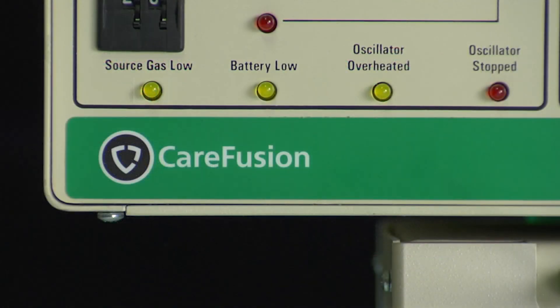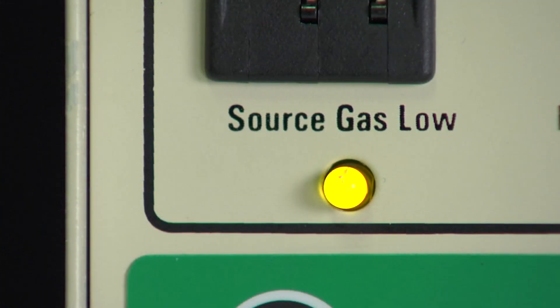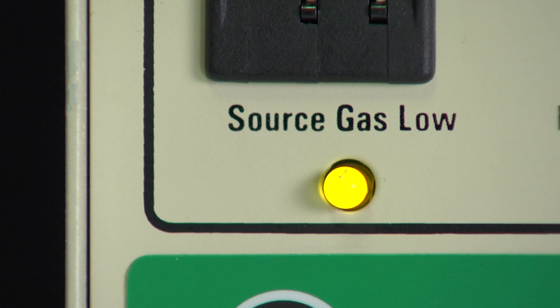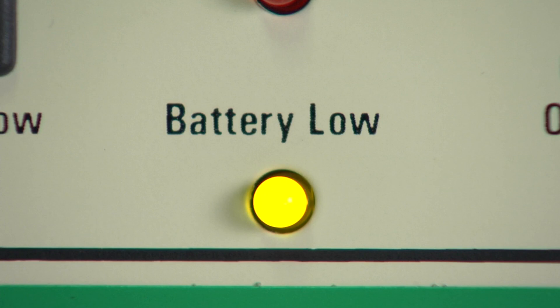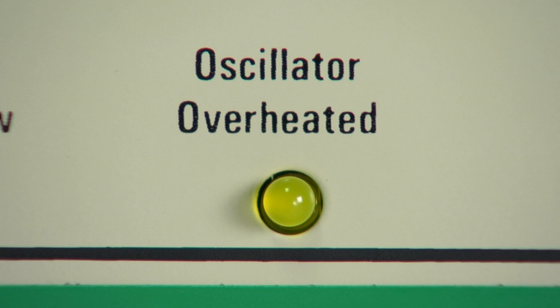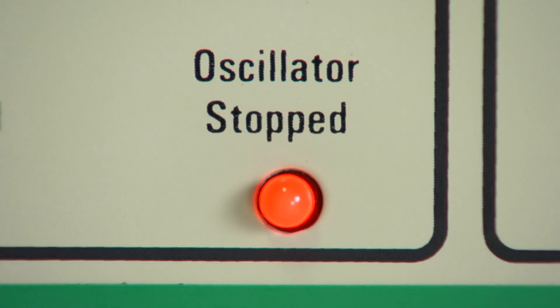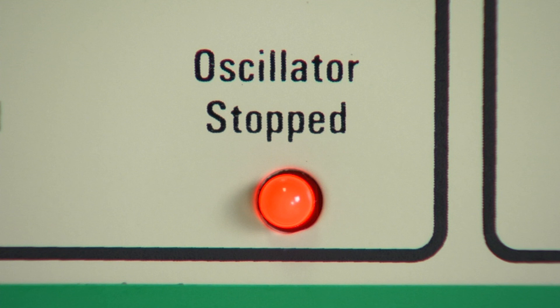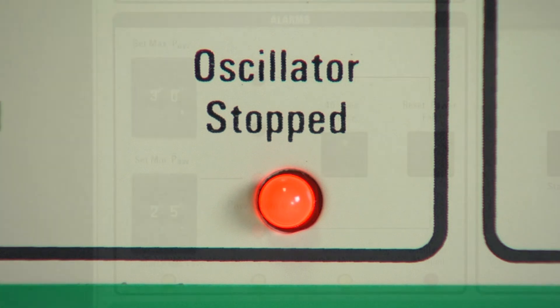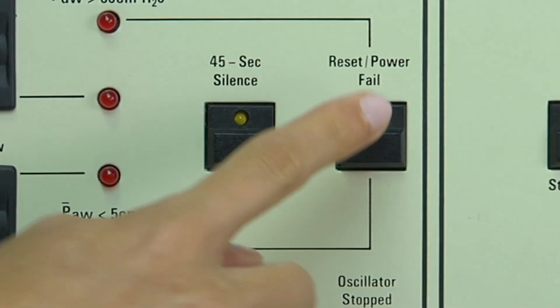Three yellow LEDs are caution indicators with no accompanying audible alarm. The first LED indicates a low source gas condition of less than 30 PSI for either of the high pressure gas inlets. The battery low LED means that the power failure alarm battery located in the rear panel must be changed. The oscillator overheated LED signals that the internal oscillator coil temperature has reached approximately 150 degrees Celsius. The oscillator stopped indicator means that the oscillator system is enabled but the amplitude is less than or equal to 7 cm of water pressure. An audible tone will accompany this red indicator and will automatically reset once the alarm condition no longer exists.